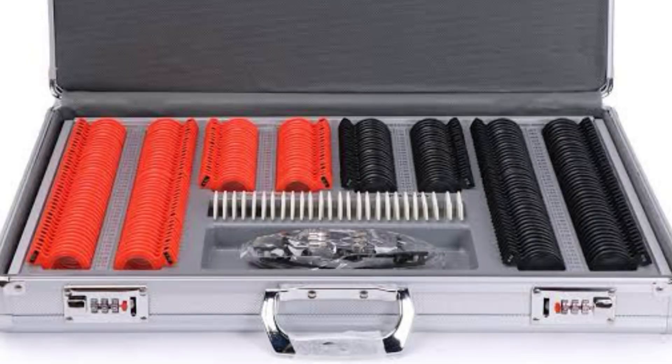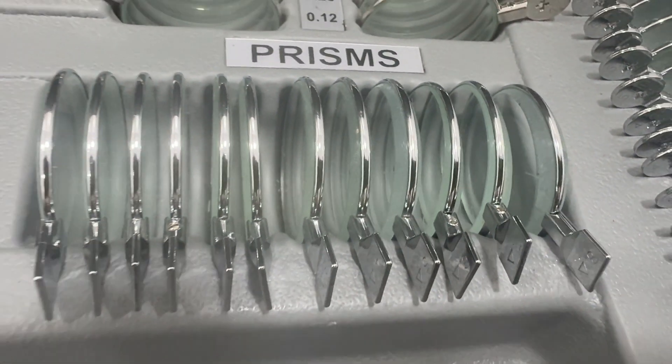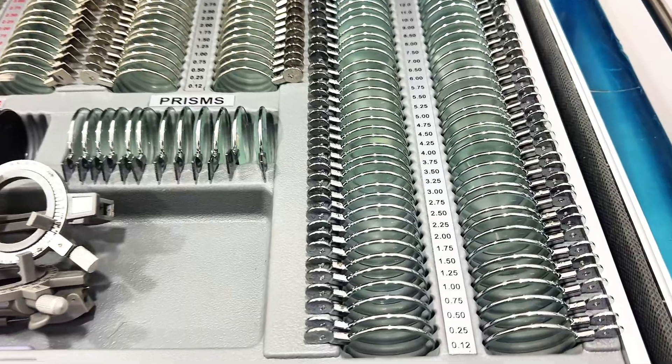Some trial lens sets also come in plastic frames. They basically perform the same functions — the only difference is that these are plastic frames while the others are metal rims. For the plastic rims, the black ones represent the plus lenses while the red ones represent the minus lenses, in both the spherical and astigmatic components.